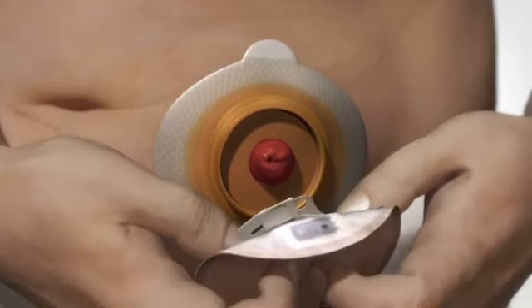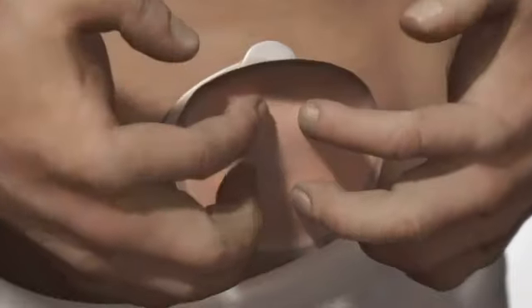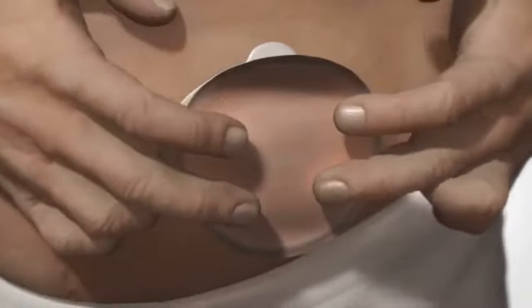After removal of the sleeve, clean and dry the base plate as usual. You might also wish to change the base plate.